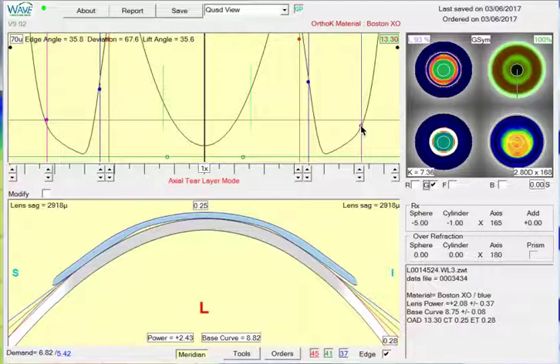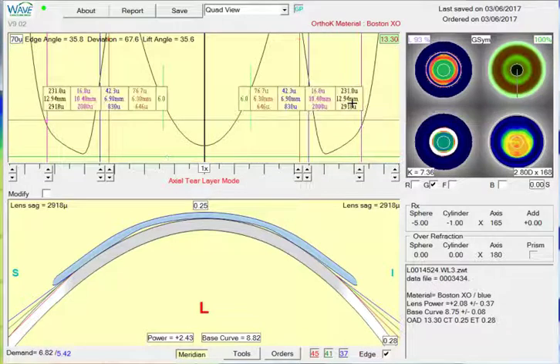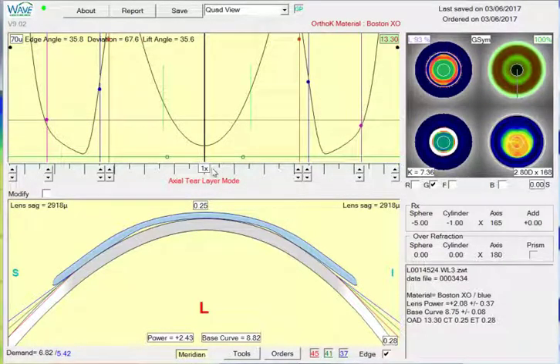I like to get the edge control point up a little bit higher, around 25 to 30 microns. Right now we're at angle 17, so we can do that all the way around at 100% mode.